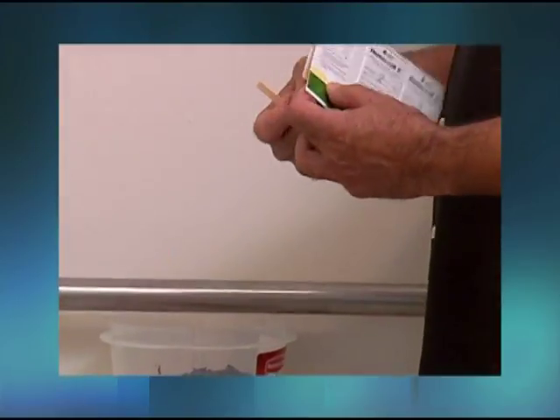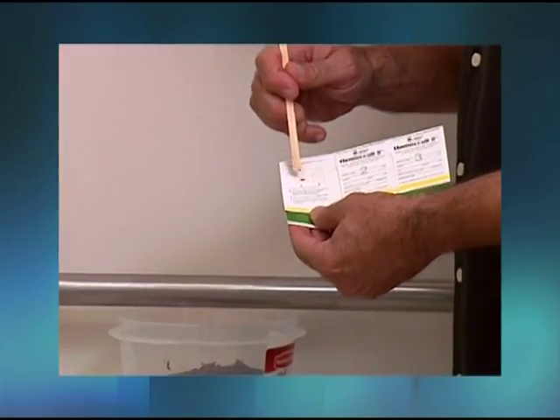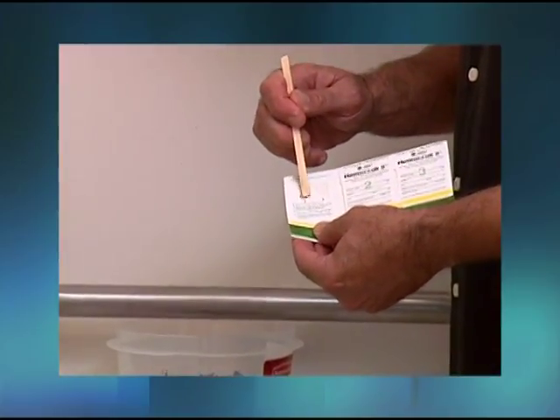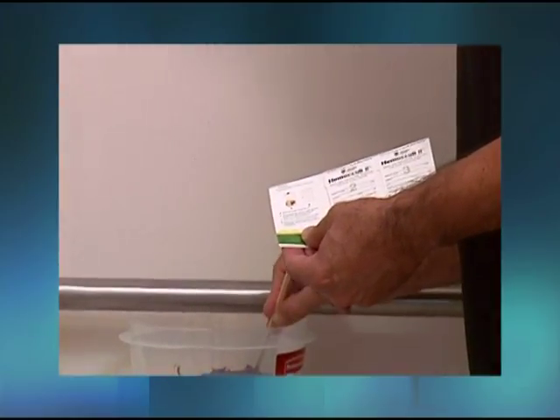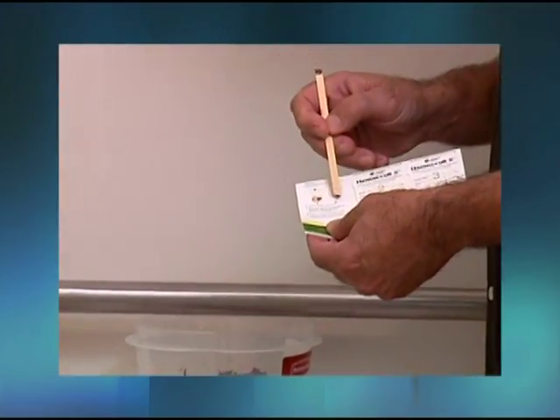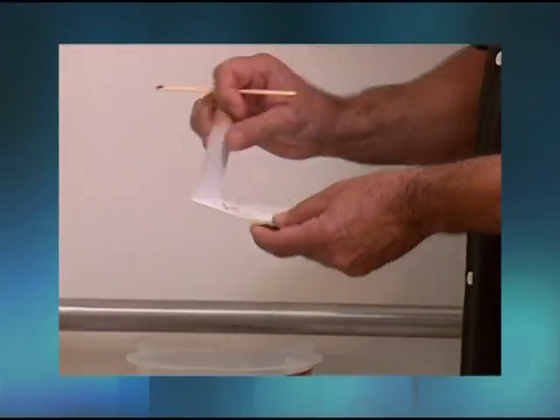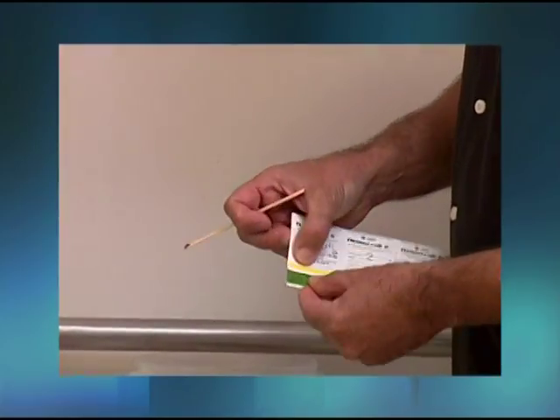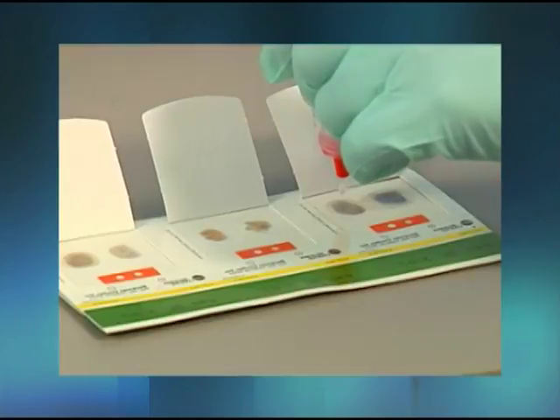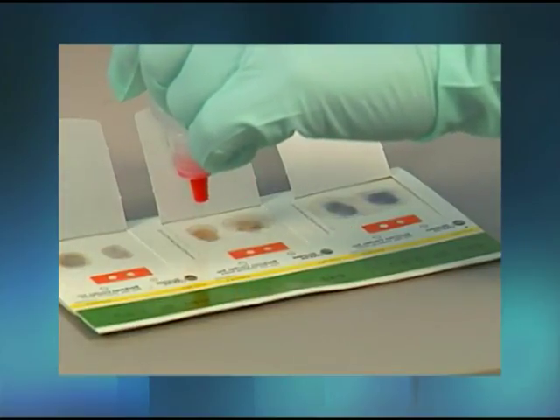Colorectal cancer is one of the most common forms of cancer in individuals over the age of 50 years. During the early asymptomatic stages, almost all neoplasms of the colon and rectum bleed in a small amount on an intermittent basis. This takes the form of hidden blood known as occult blood. Routine screening of stool specimens for occult blood using a Guaiac slide test is frequently performed in the medical office to screen for colorectal cancer.